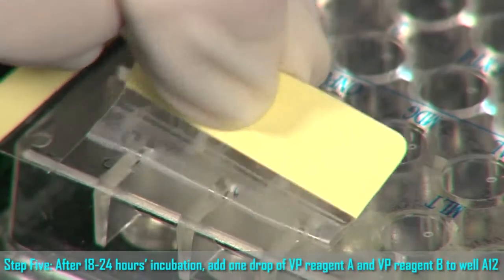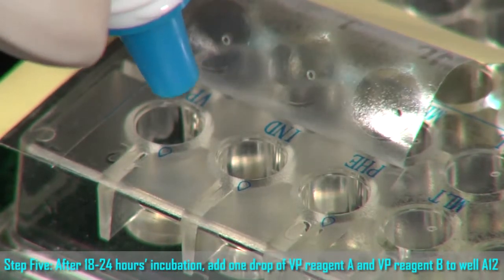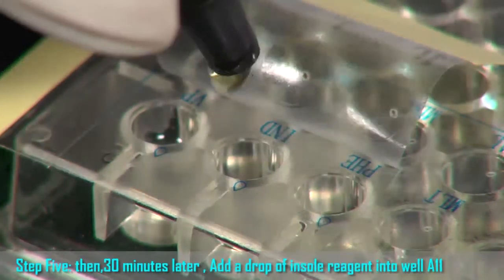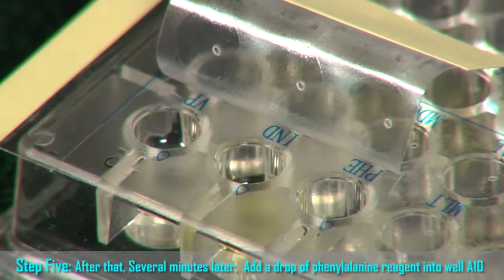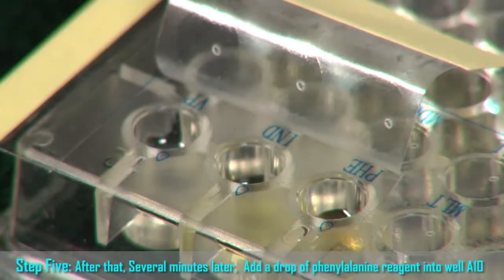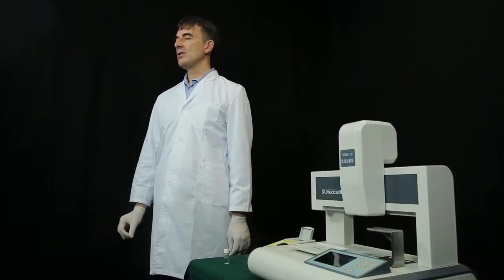Step 5. 18 to 24 hours later, add 1 drop of VP reagent A and 1 drop of B to well A12. Then, 30 minutes later, add a drop of indole reagent into well A11. After that, several minutes later, add a drop of phenylalanine reagent into well A10. Then the preparation of the DL96E test card is finished.